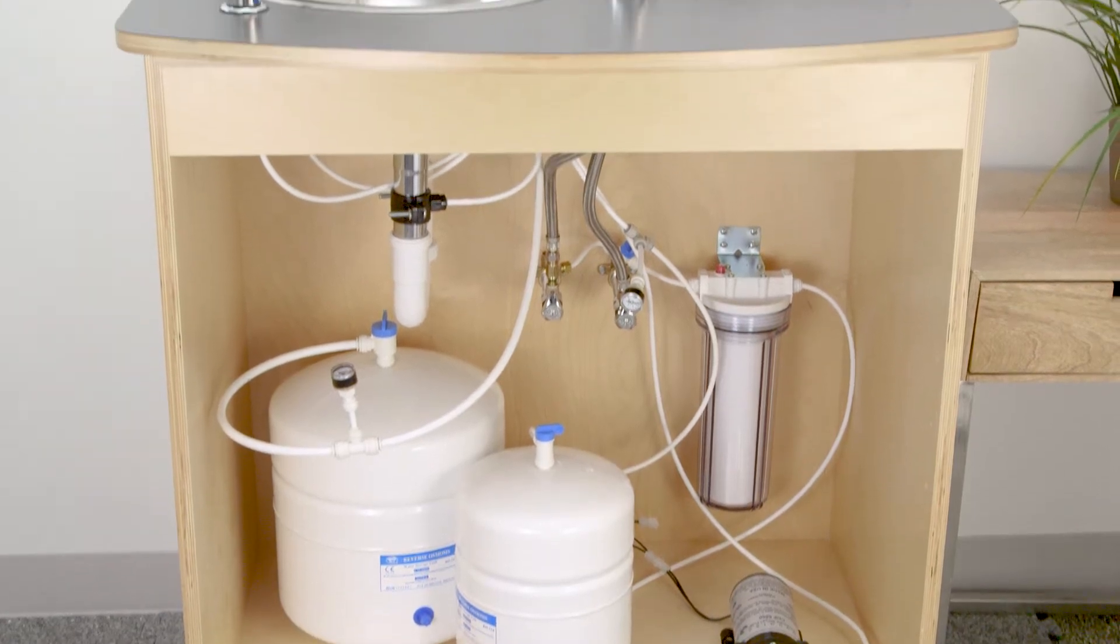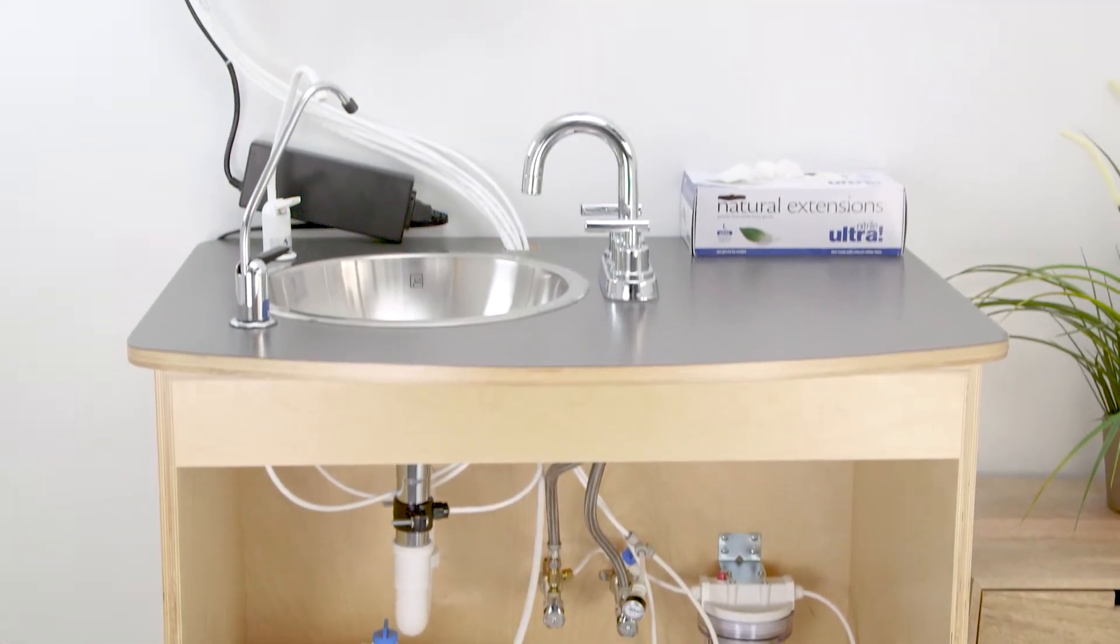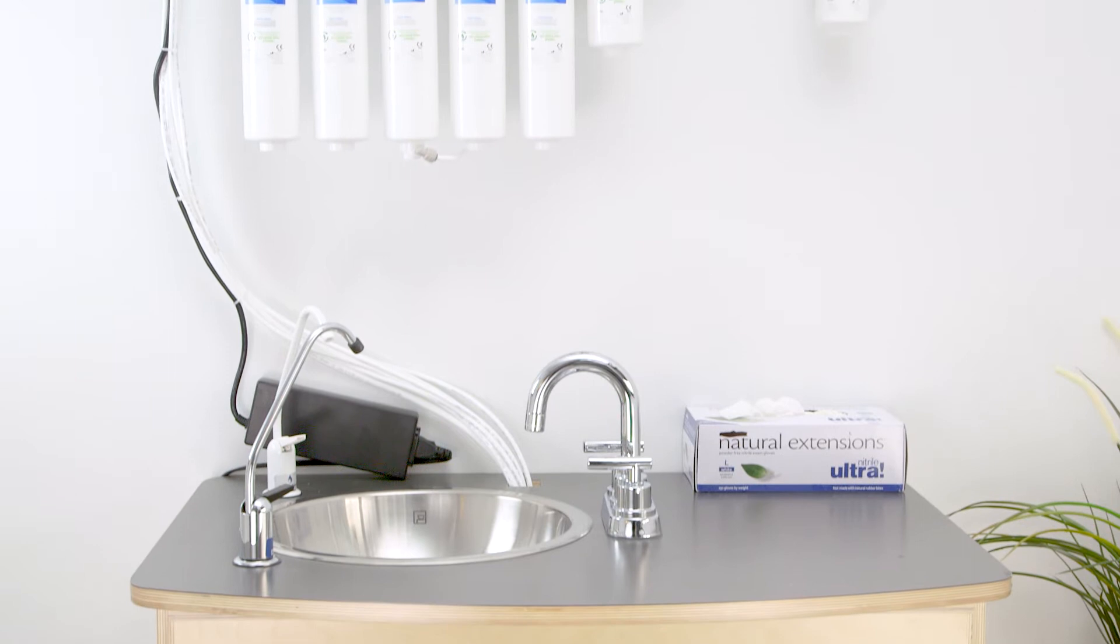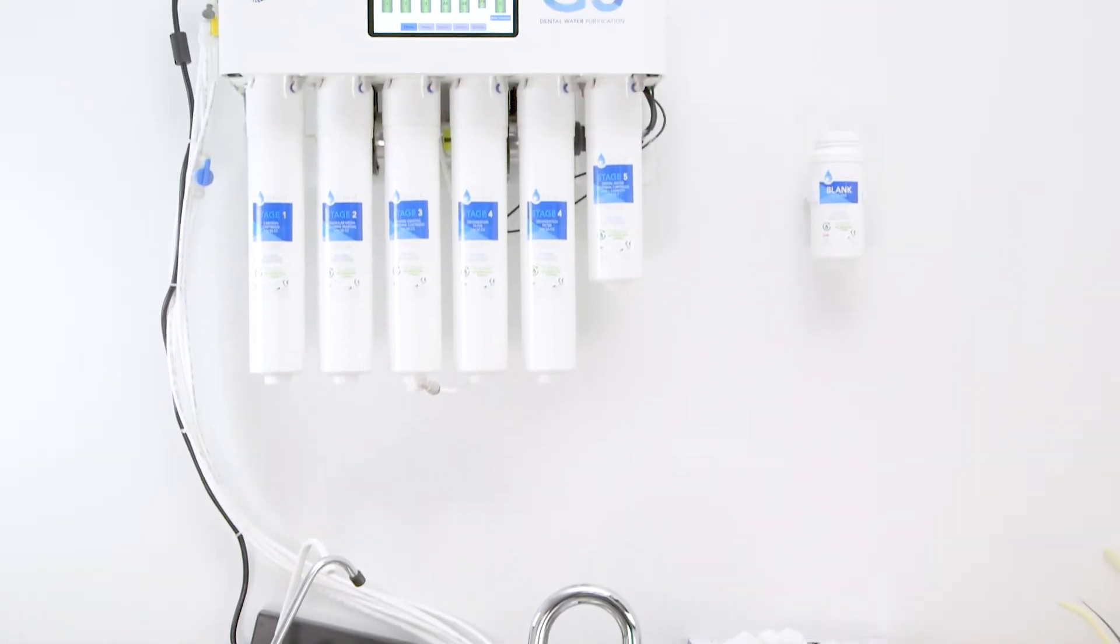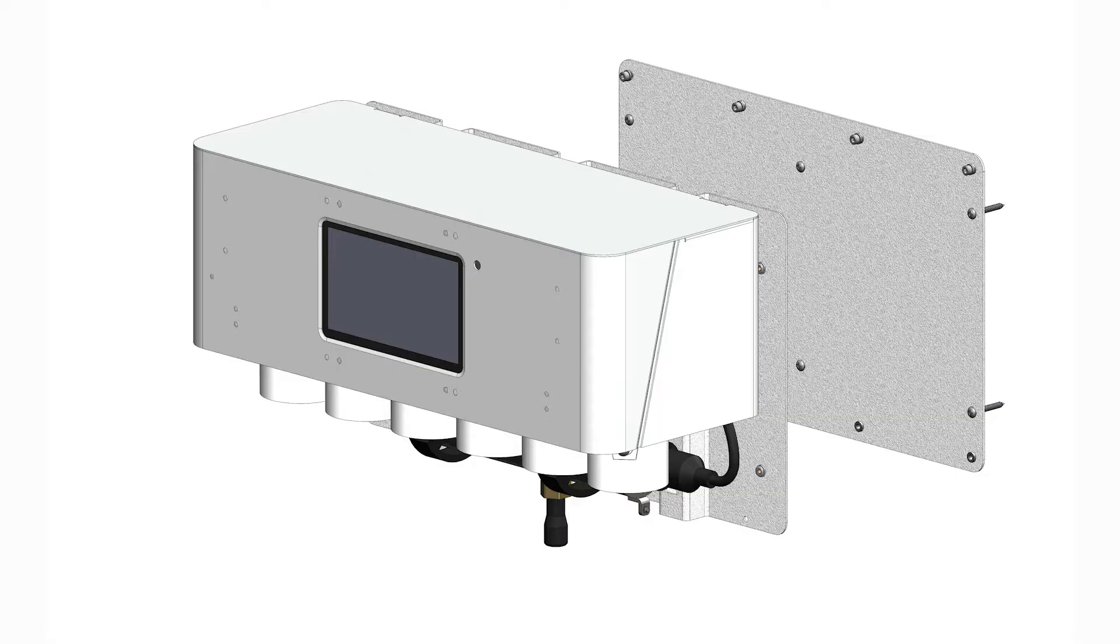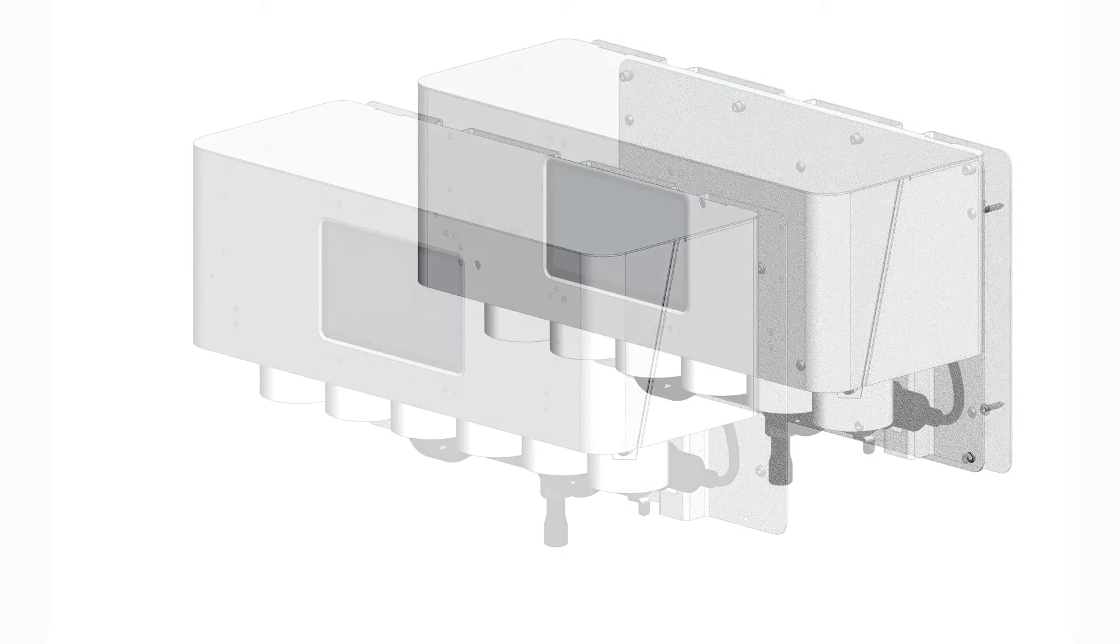The G5 can be mounted in one of three ways: an articulating arm wall mount, a sliding mount inside a cabinet, or a static wall mount. In this demonstration, we'll use the static wall mount method.